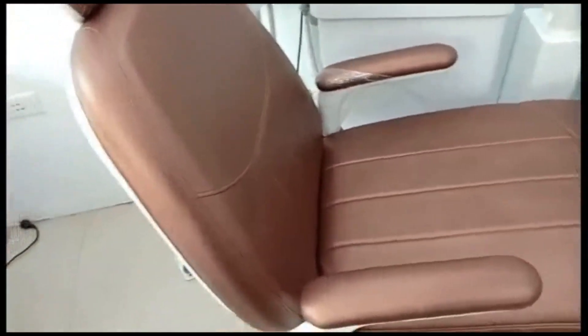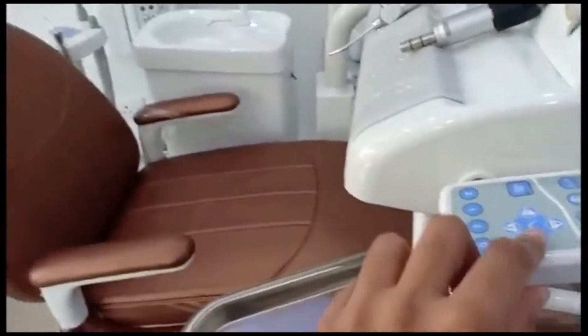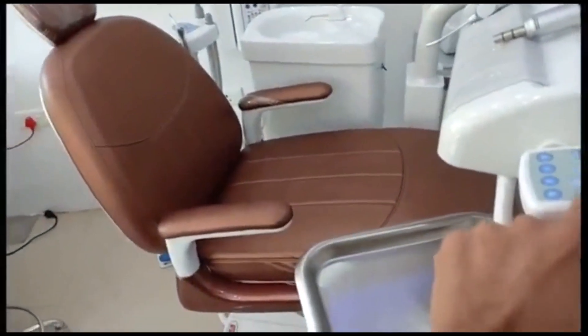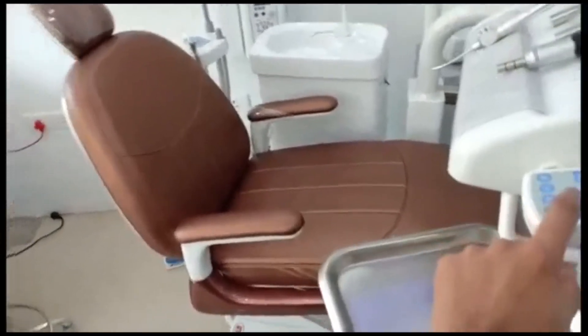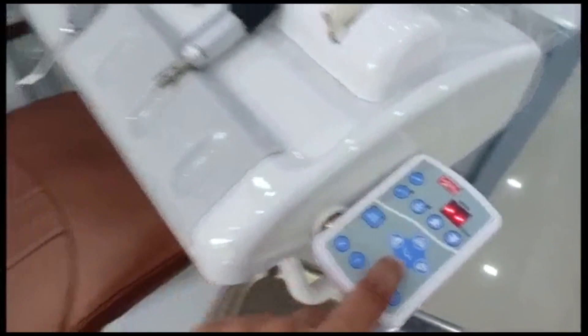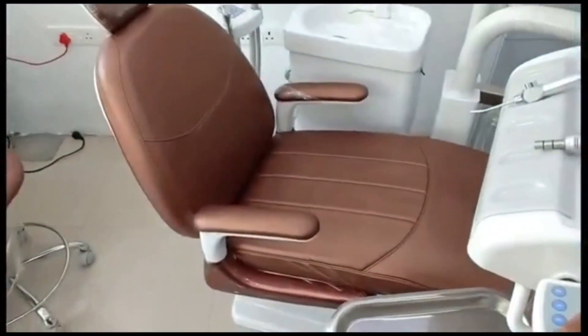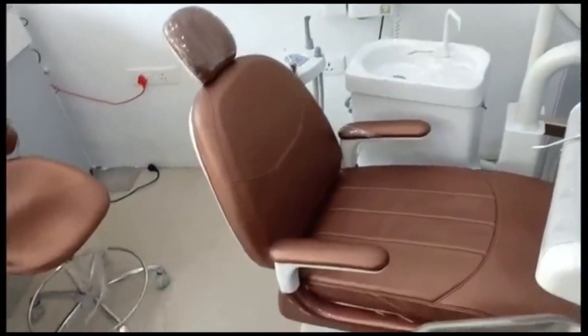These can be moved based on the dentist's treatment procedure, accessibility, and convenience. Let's start with the power unit — it's already on. We have a control panel at various positions; one control panel is here. You can see the dental chair is moving — it's already at the highest position, so we bring it down using this symbol.